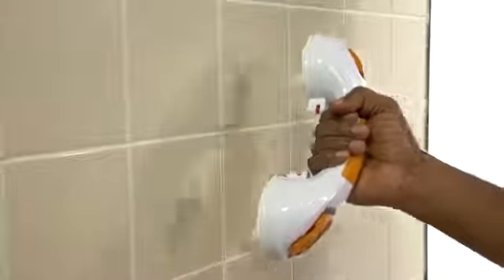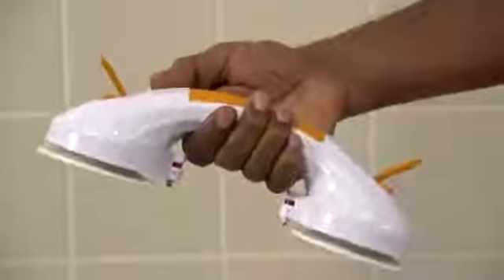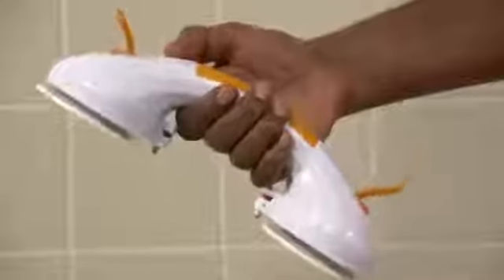The bar comes in a variety of sizes to fit your lifestyle. It attaches and removes easily in just seconds. Drilling holes is not required for installation. In fact, you don't need any tools or adhesives.